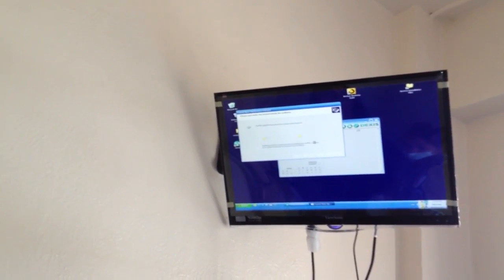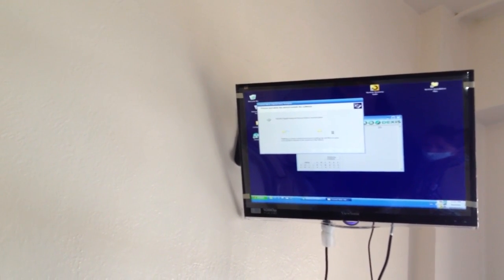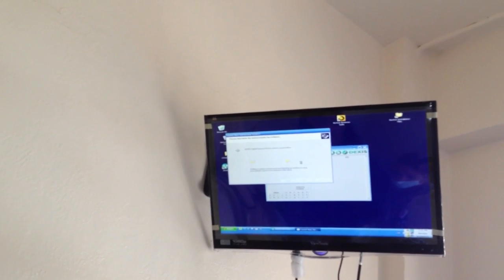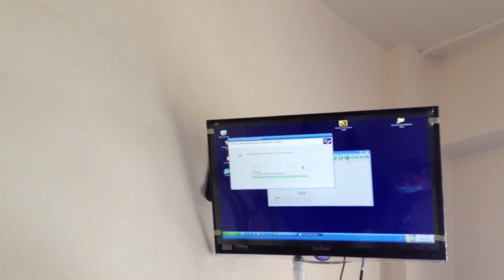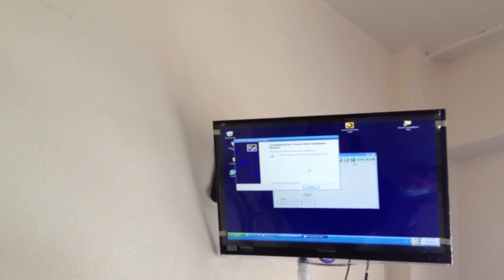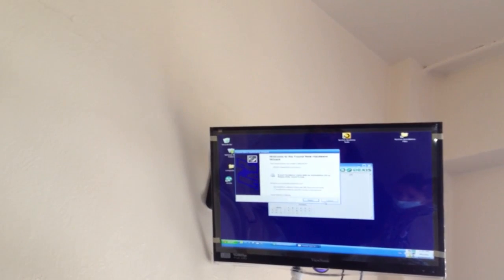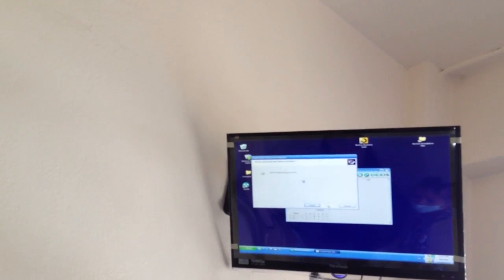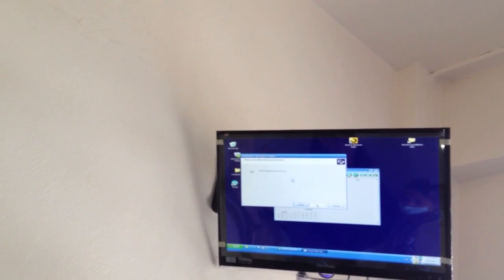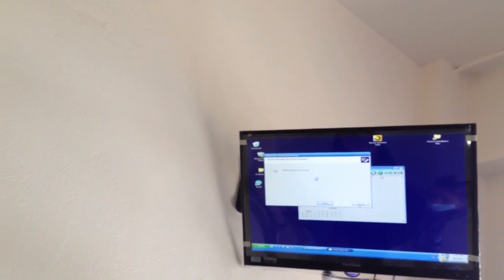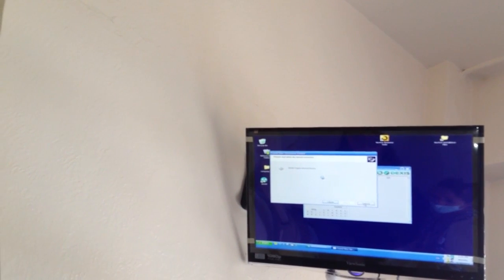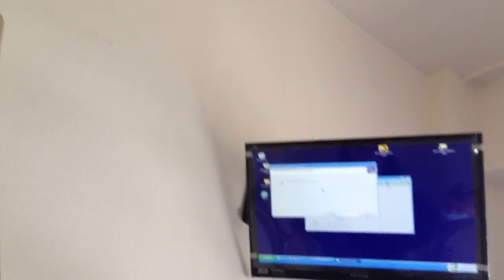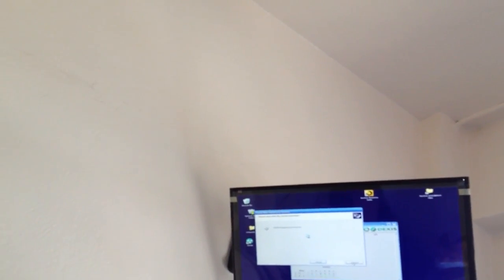There we go. Here it goes. There it goes. Finally found. Now it's working. Finish. Okay. All right. Again. It might do it again. Close it. You can cancel it. Because it's already done. It should not be necessary. It's already installed. The driver there.